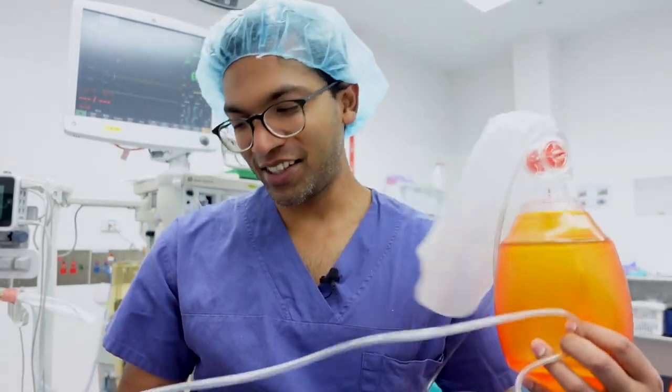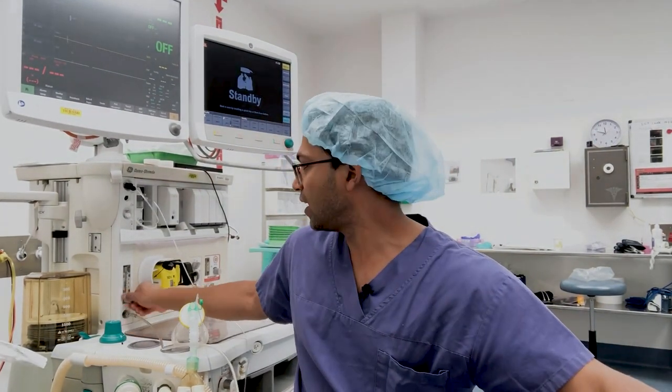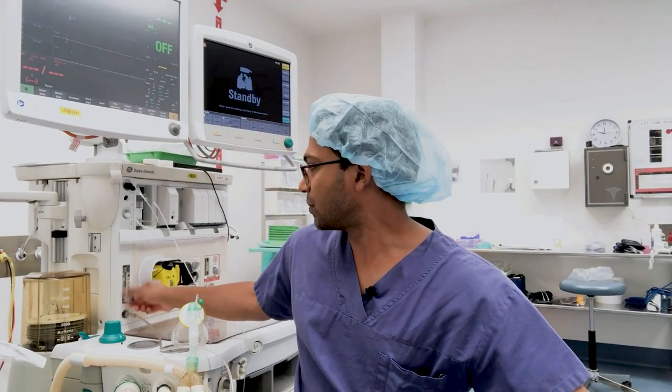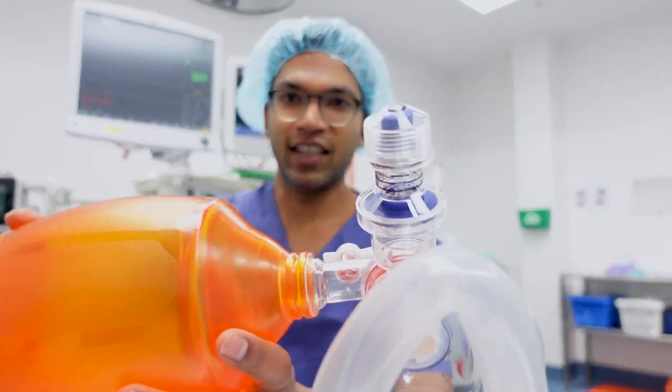The next important thing: if you want to deliver oxygen you have to connect this end to an oxygen source — connecting it to one of the variable orifice flow meters and turning it on. If I've got a patient I'm really worried about, I'll turn this up to 15 liters straight away, which means the patient's going to be safe as long as I'm ventilating and oxygenating them. One trap in resuscitation situations is that this connection can easily become disconnected, so always make sure you've got oxygen flow — you can hear it or see the fogging of the mask going away because of the oxygen flow.